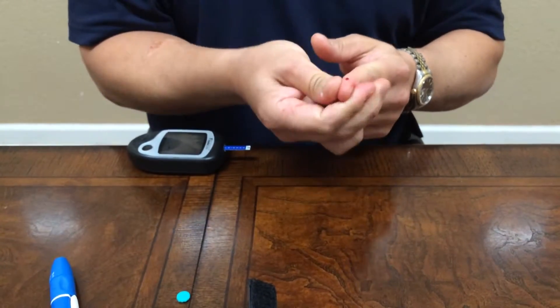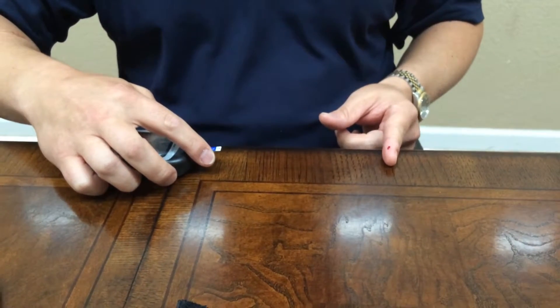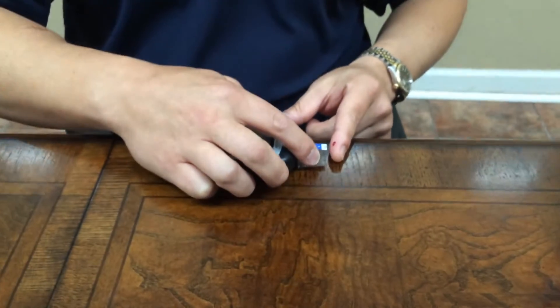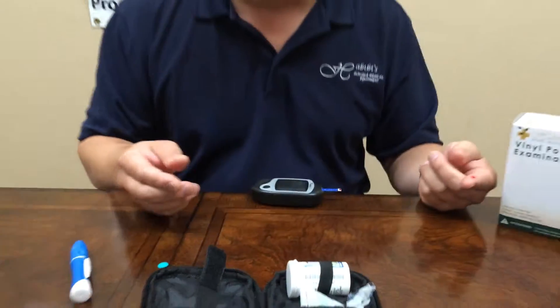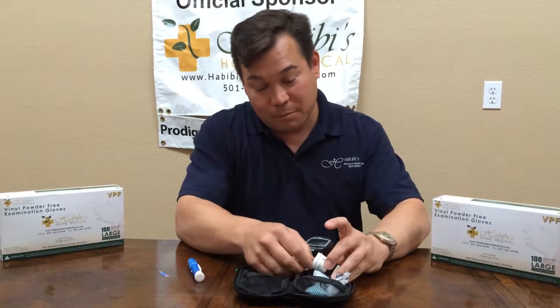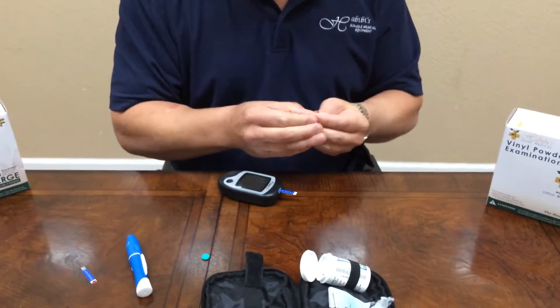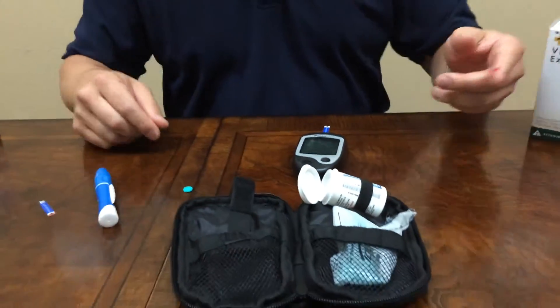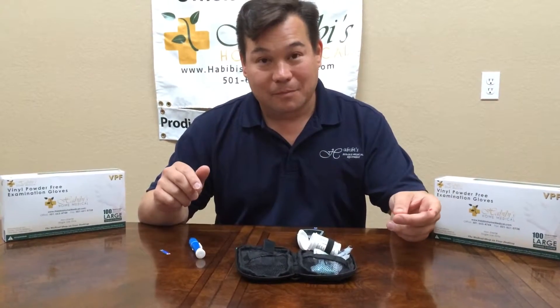You always want to tell them you're not going to be able to see this, so keep squeezing. Then what I have them do is take one finger on the side of the strip to get an idea where it is, and your thumb over the ridge of a straight line, slide the meter directly across the table or edge until you get to the blood, and roll the finger. We'll pull and try this one more time. The meter speaks: 'Your Prodigy meter is on. Please wait. Please apply blood into the test strip. Testing. Blood glucose, 120 milligrams per deciliter.'